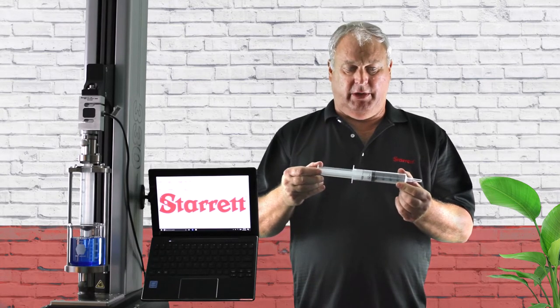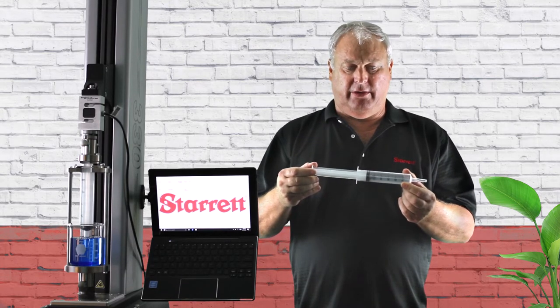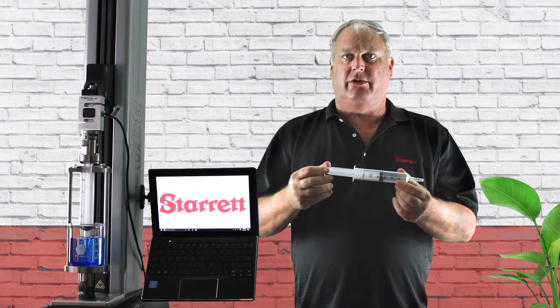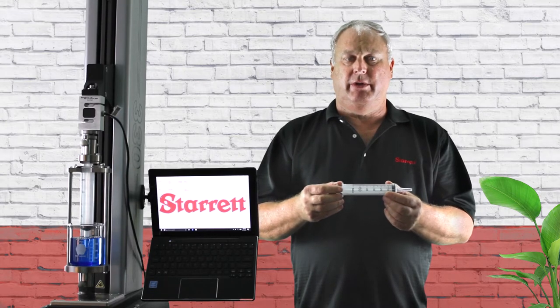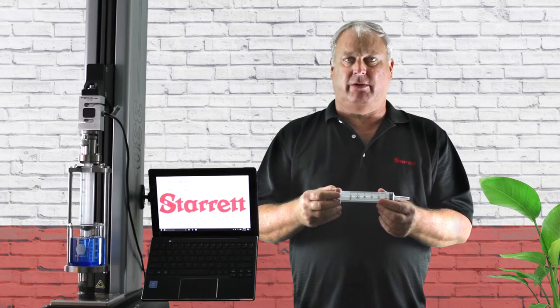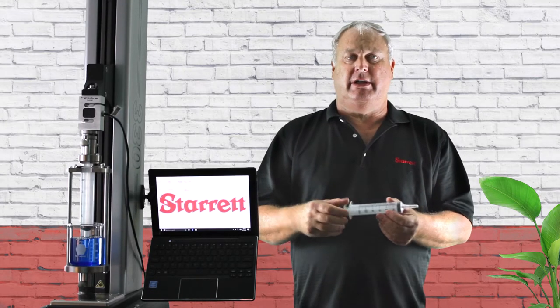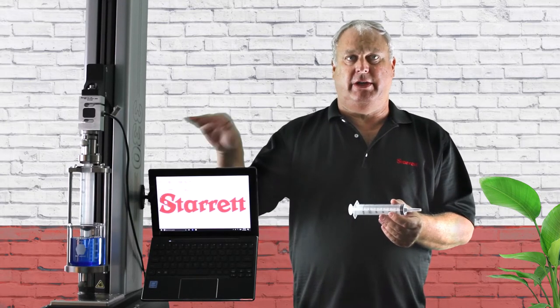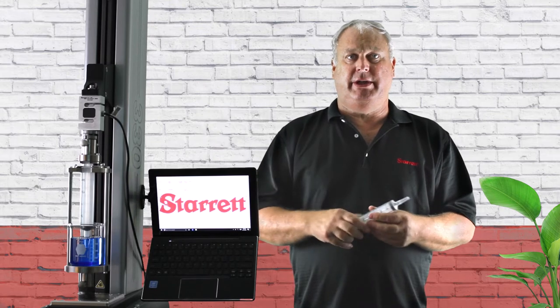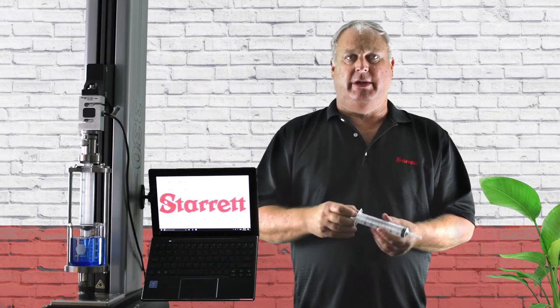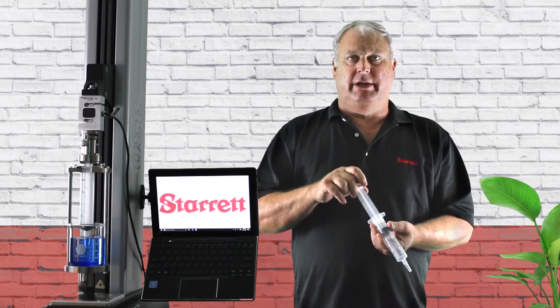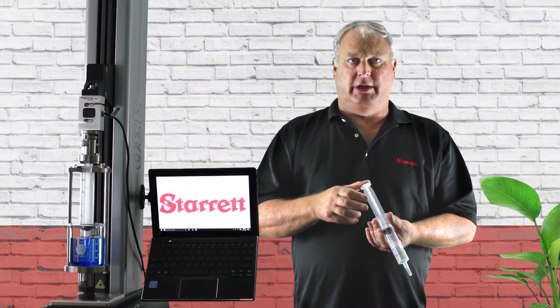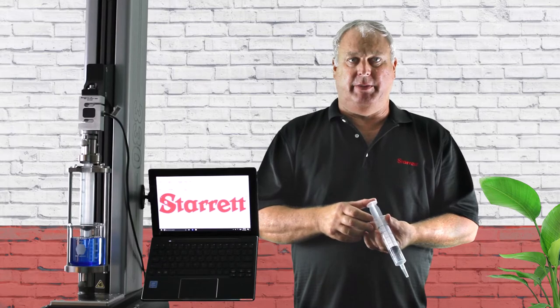We're going to look at as the plunger extracts and inserts. We're looking for a nice smooth insertion extraction. As you can see in the test fixture we have over here, we're going to be sucking up some fluid and pushing it back into the beaker.